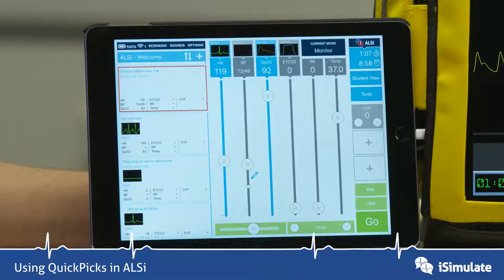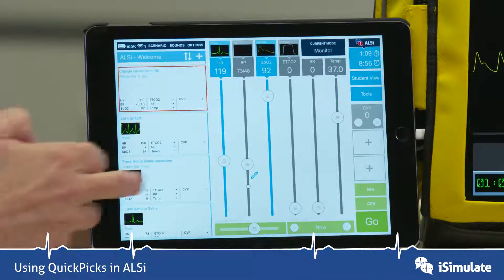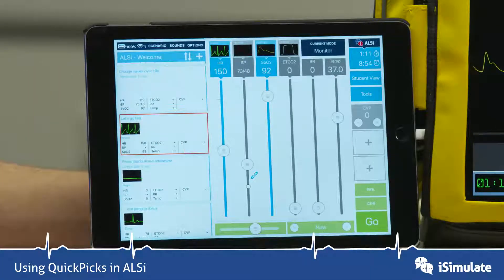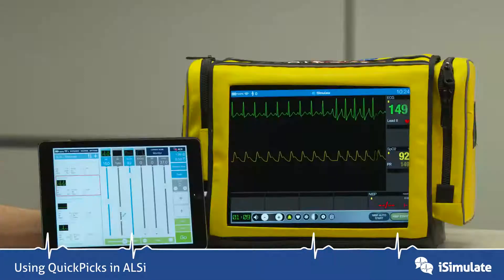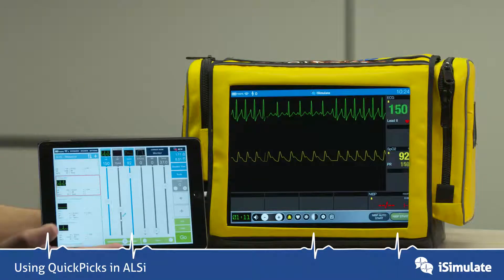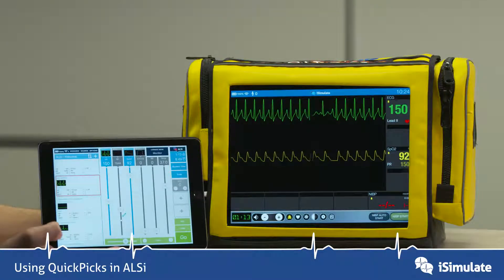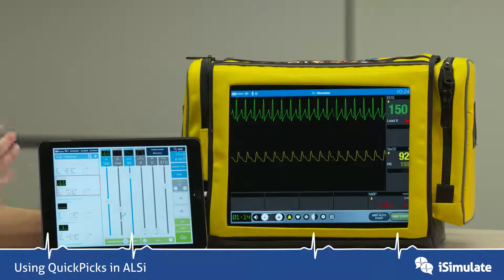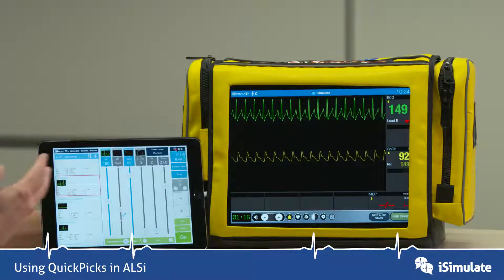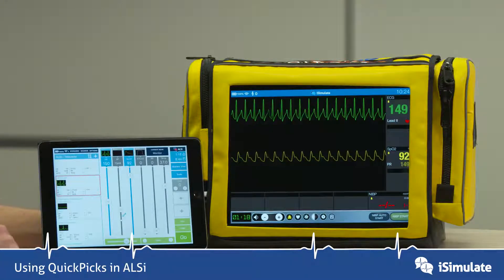The next QuickPix is an atrial tachycardia. So let's go into that. And as you can see, that has now changed the waveform and changed the rate. So you can use it to change the images you're seeing in different waveforms and the rate that they're at.